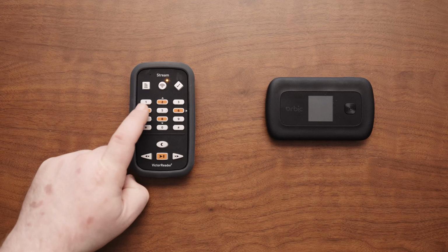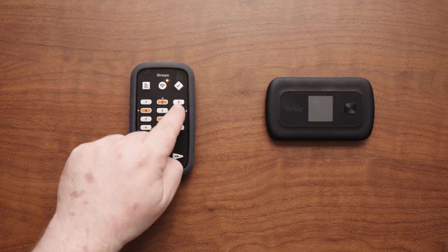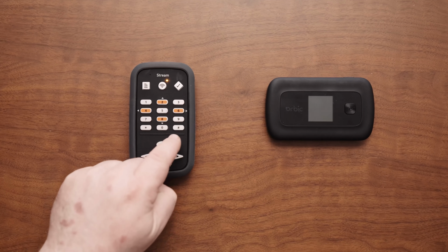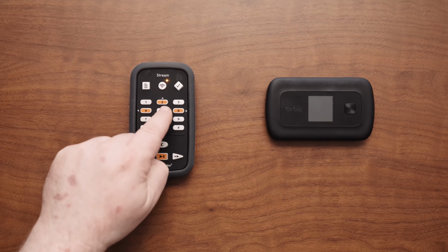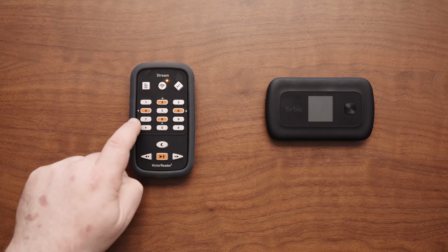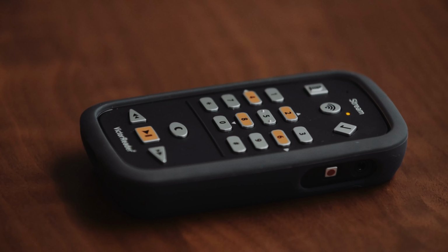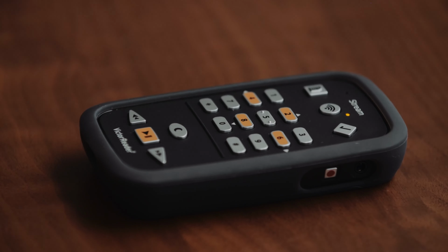10. Enter the password good books without the quotation marks. Note: this password is formatted in lowercase letters without a space between the words. 11. Press the confirm key # after the password is entered correctly.